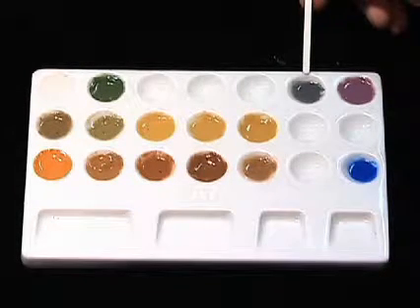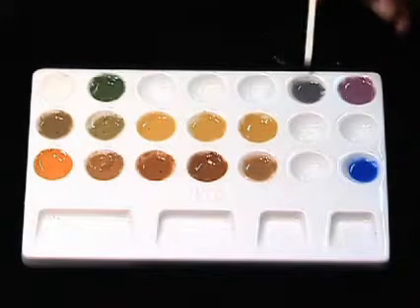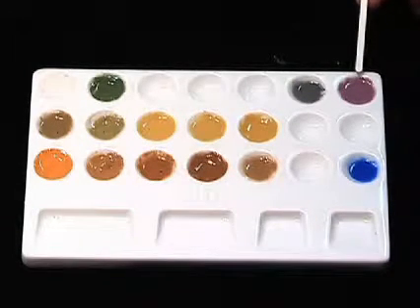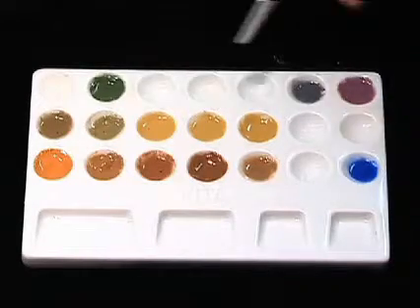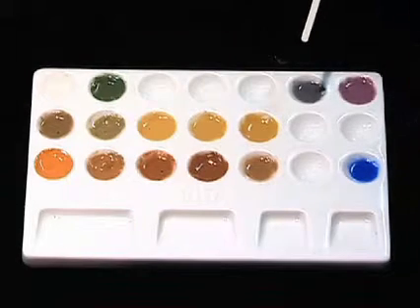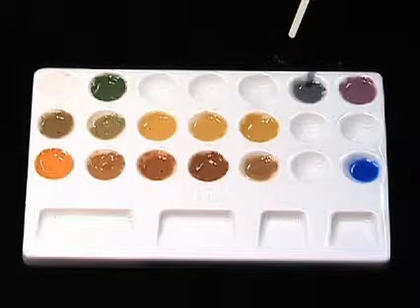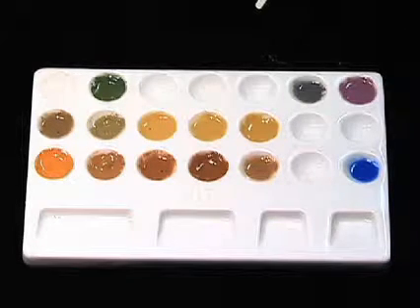We've got what I call value modifiers over here on the right side. We've got our gray, our lilac or violet, and then we've got blue. And then essentially through the entire middle are just a number of different hue and chroma modifiers that are kind of in the basic tooth shade range.